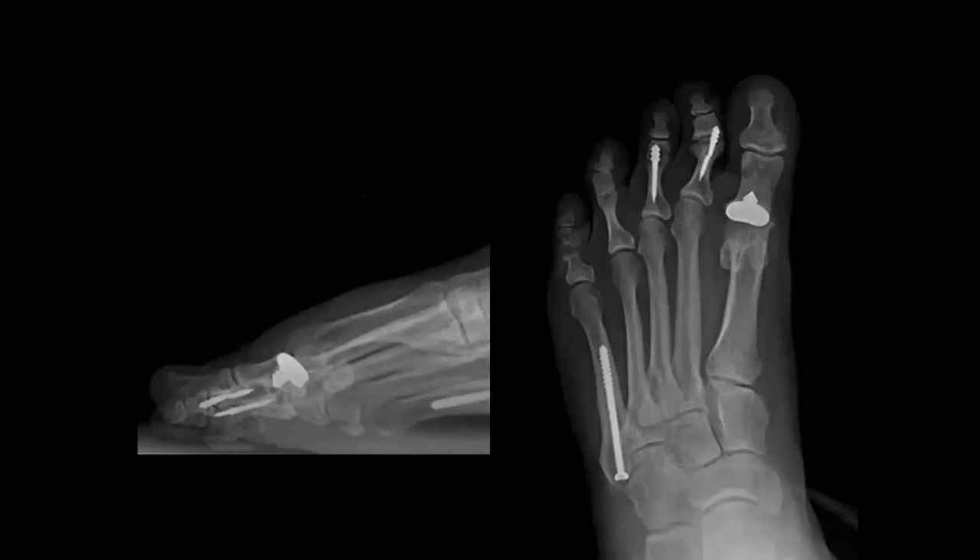Now the complication. This patient has had a lot of surgery. Two views of the left foot — there is a hemi-arthroplasty on the first MPJ. The joint appears well aligned with no backing out of the hardware. There are two screw placements — a screw at the second PIPJ and the third PIPJ. On the second digit, there's a hardware malfunction — the screw is broken in half. On the third digit, the joint is well opposed and hardware is intact.